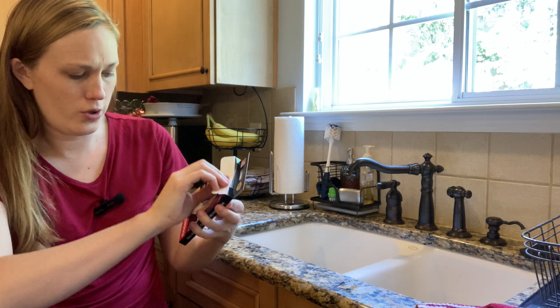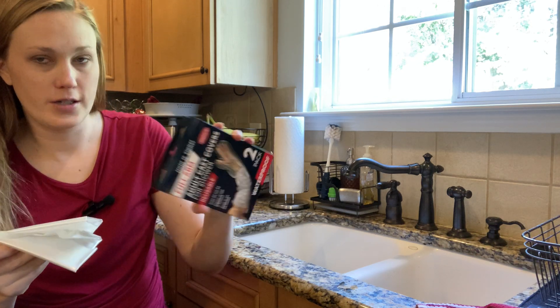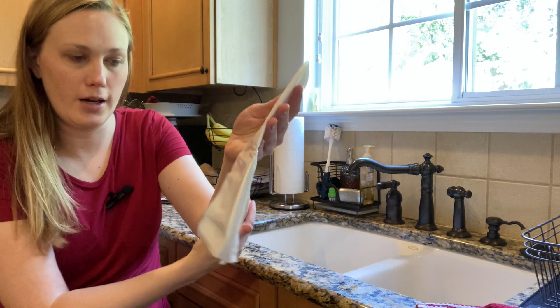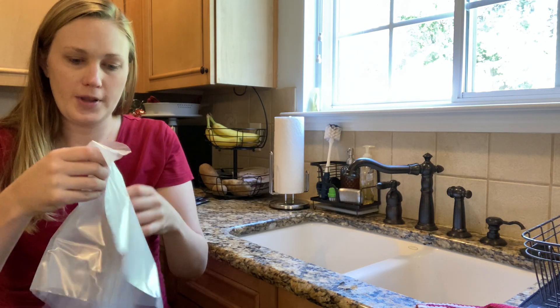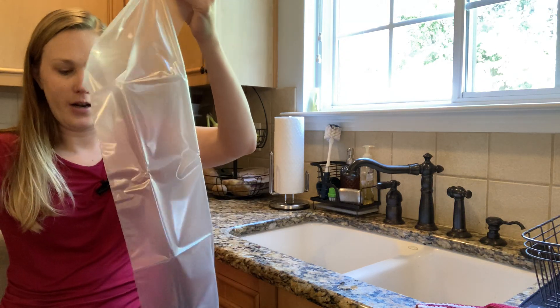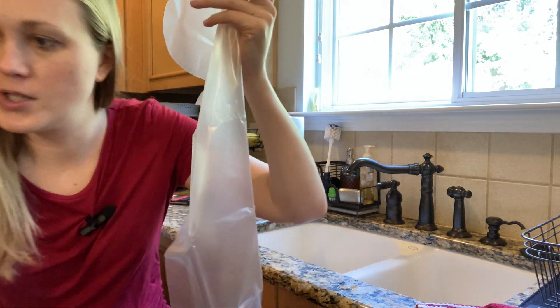It comes with two — they say waterproof, and we're about to find out — cast covers in there. That's just what's in the box. No pamphlet or insert or anything, just these long covers. We're going to open this up. They're really long, my goodness. It doesn't look like there's anything that seals the end, so I'm going to put this one aside.